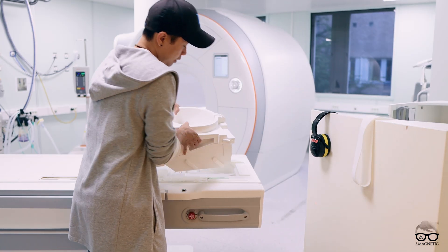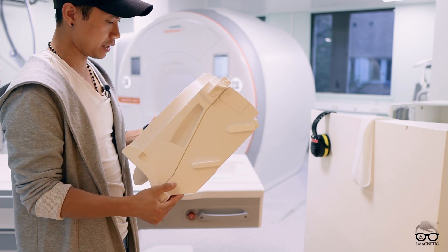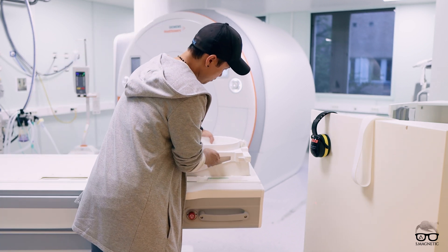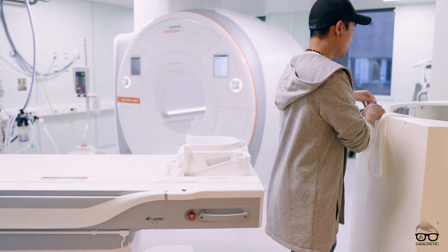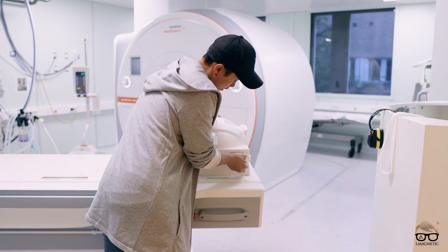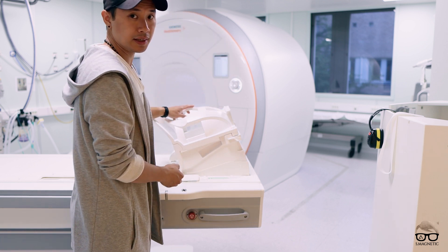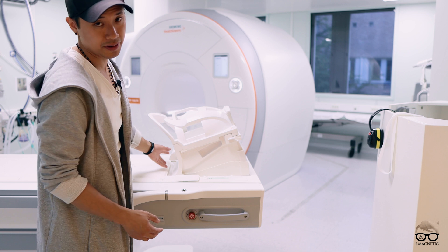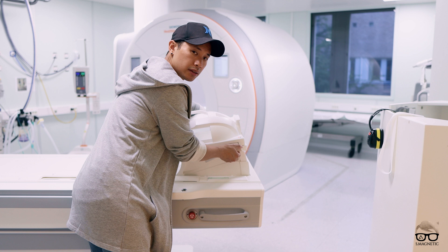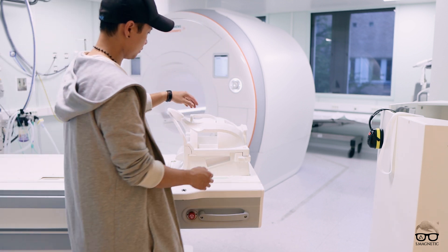The new thing here is the 20-channel head-neck coil. It has very improved, better shimming, so you get better head and neck images. The most important and very cool feature is that it's tiltable. You have two sizes of tilting — as you can see, it's very good for kyphosis patients. You can adjust it to two positions: nine degrees and 18 degrees. It's very awesome and very useful.